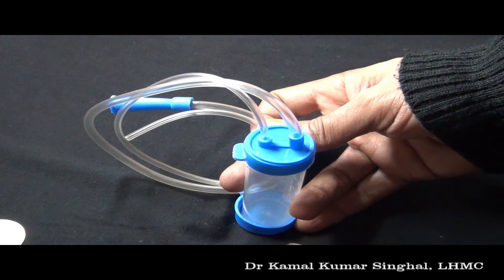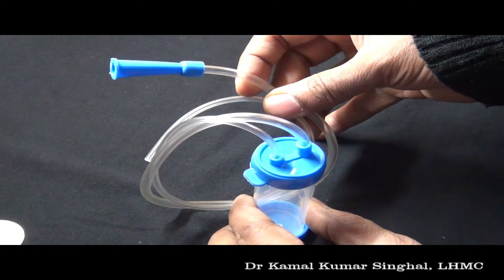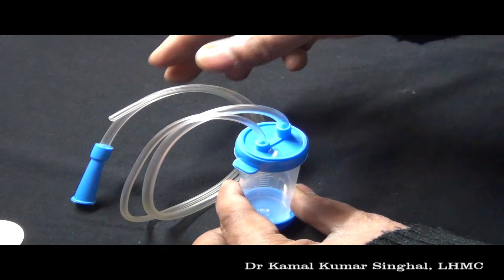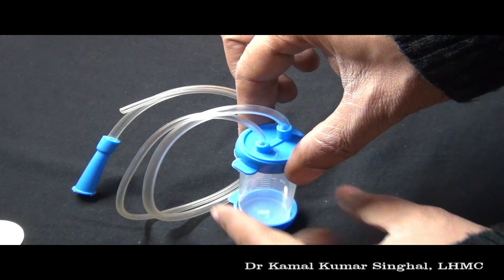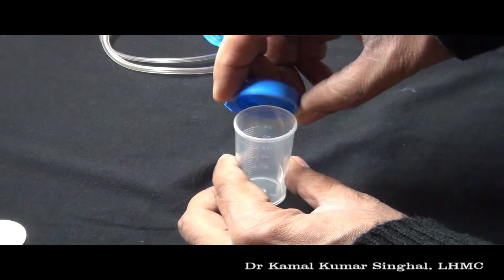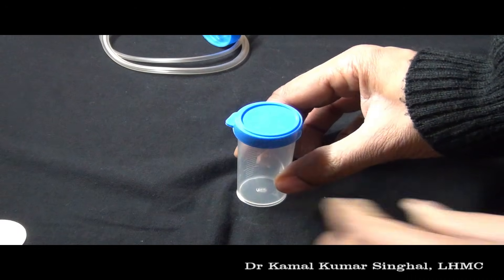This is a mucus extractor. It has two tubings: the blue end is connected to the suction machine, and if that is not available it can be used for mouth suction. The other end is to be inserted into the patient. While doing suction with the mucus extractor, the chamber has to be kept erect. The cap at the bottom of the chamber can be used to recap the chamber after sampling is finished, to transfer the sample to the laboratory.